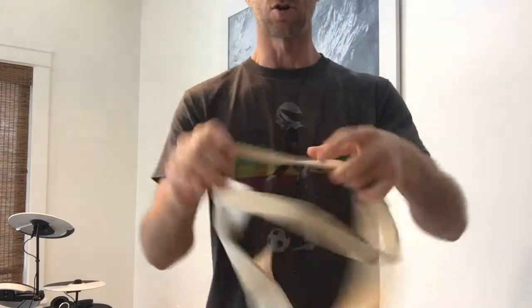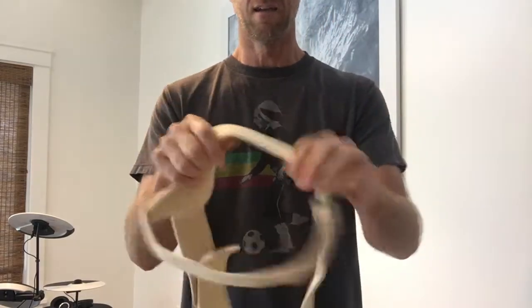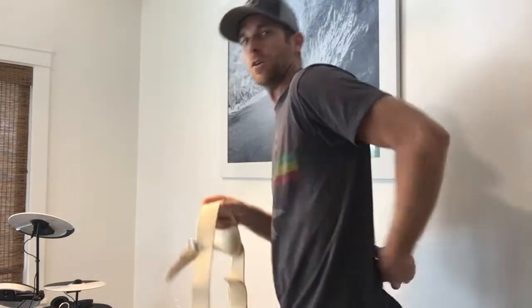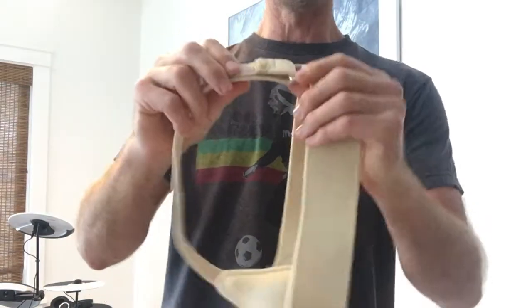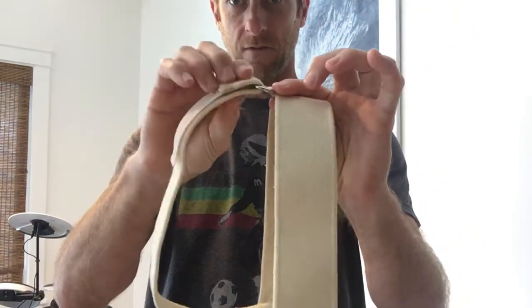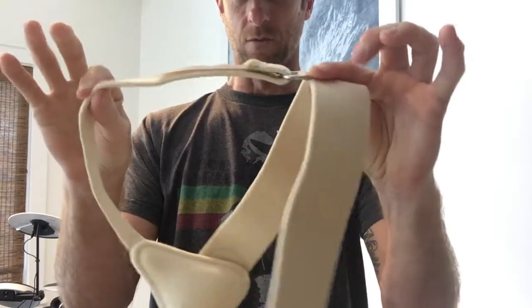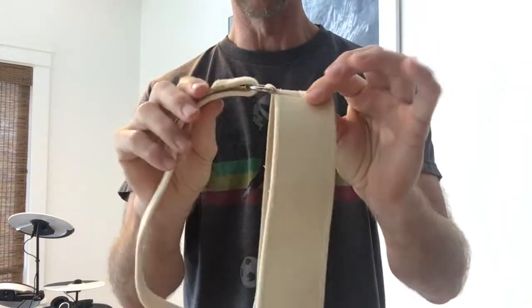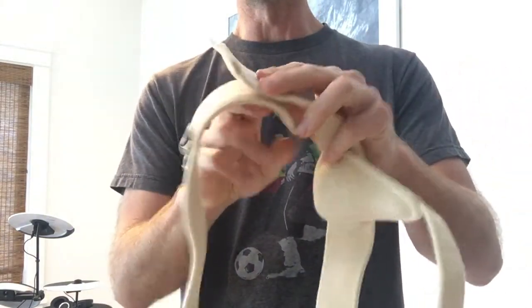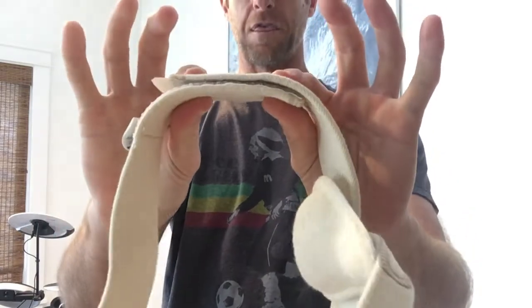And it's super bulky — the strap is really big and fat, rides up around your back when you're bending over, and your shorts kind of sag down underneath it. What also makes it bulky is that the big strap has to fold down onto itself, so look how much thicker that is than just the one strap itself once you fold it. Plus it's got this hardware which makes it kind of bulky, and when you strap it together in the front it just makes it really thick.